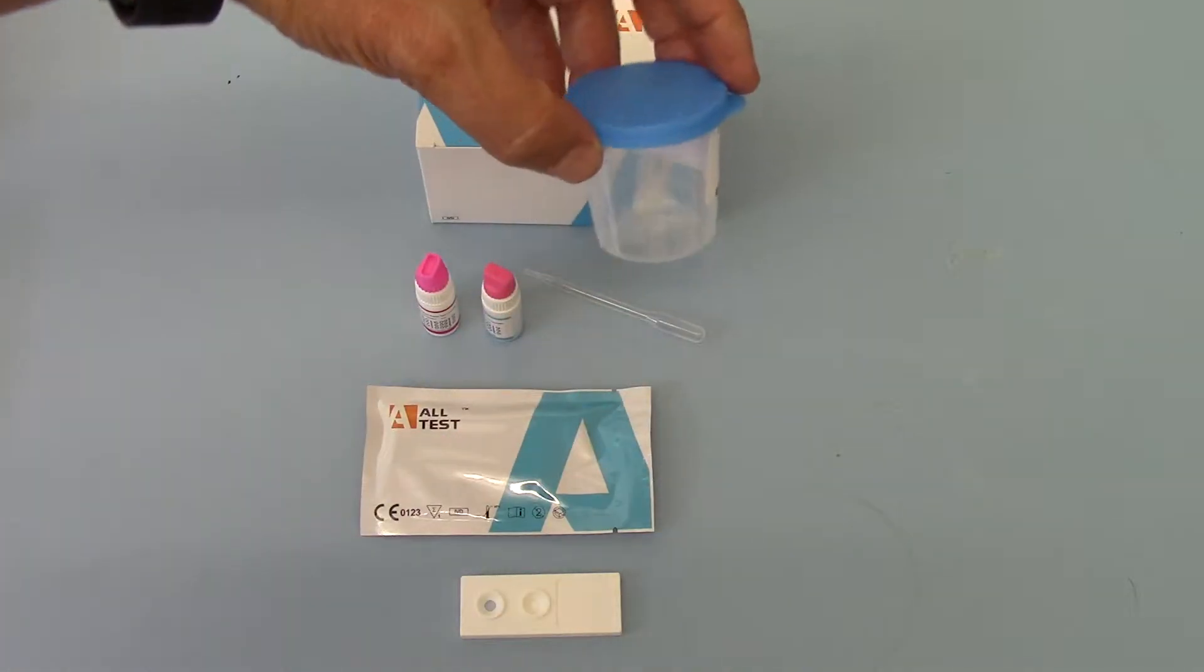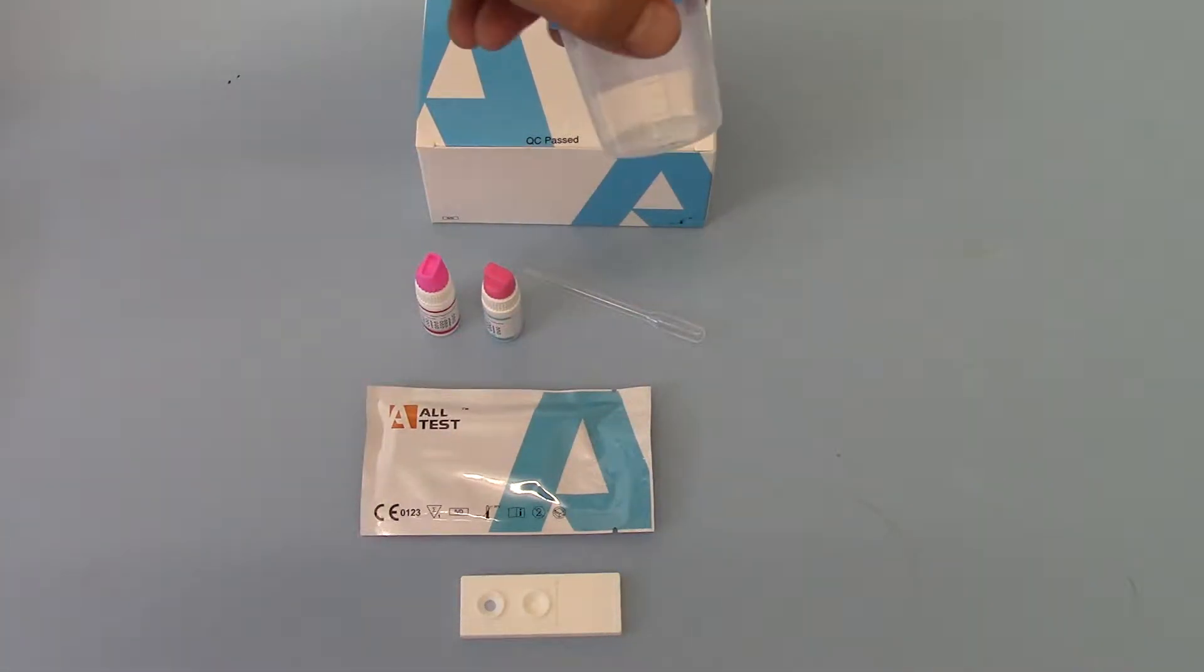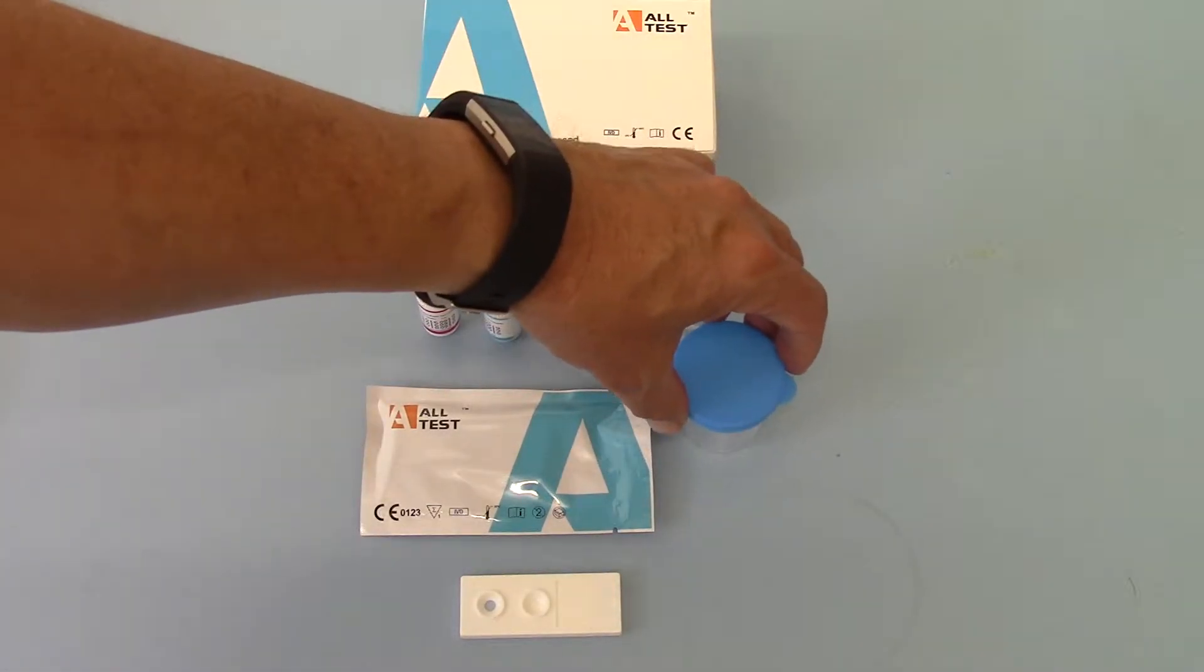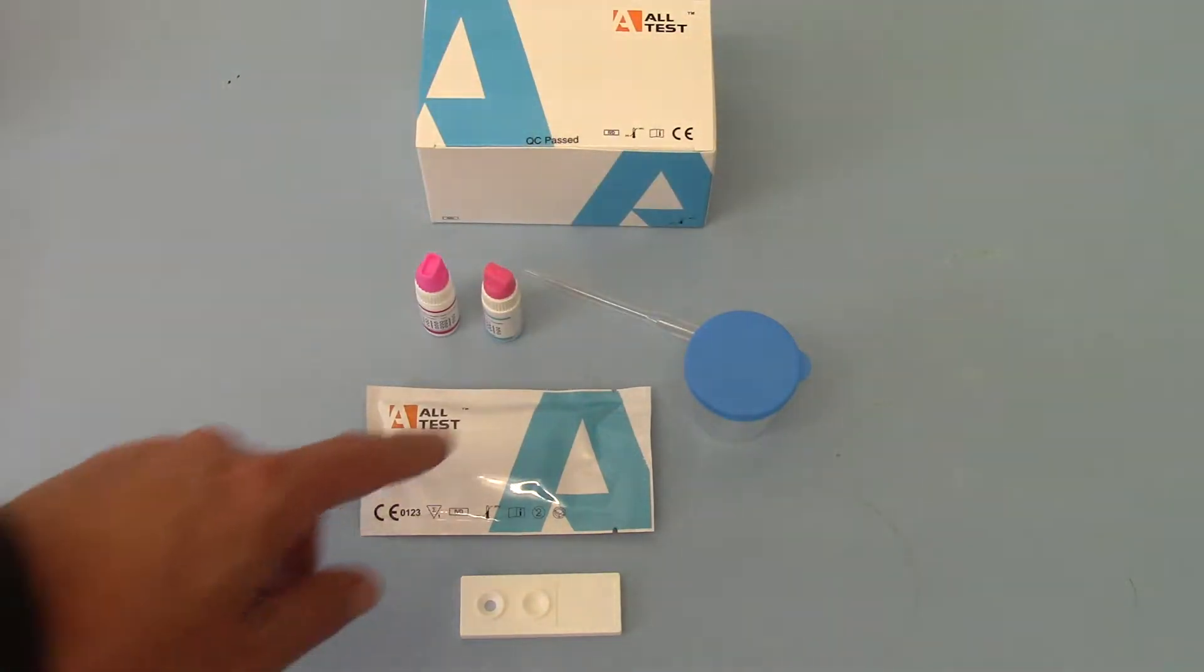It sometimes forms a film on the base but usually once it's been through the post it is in an almost semi-powdered or crystalline form loose within the container. You get a pipette.